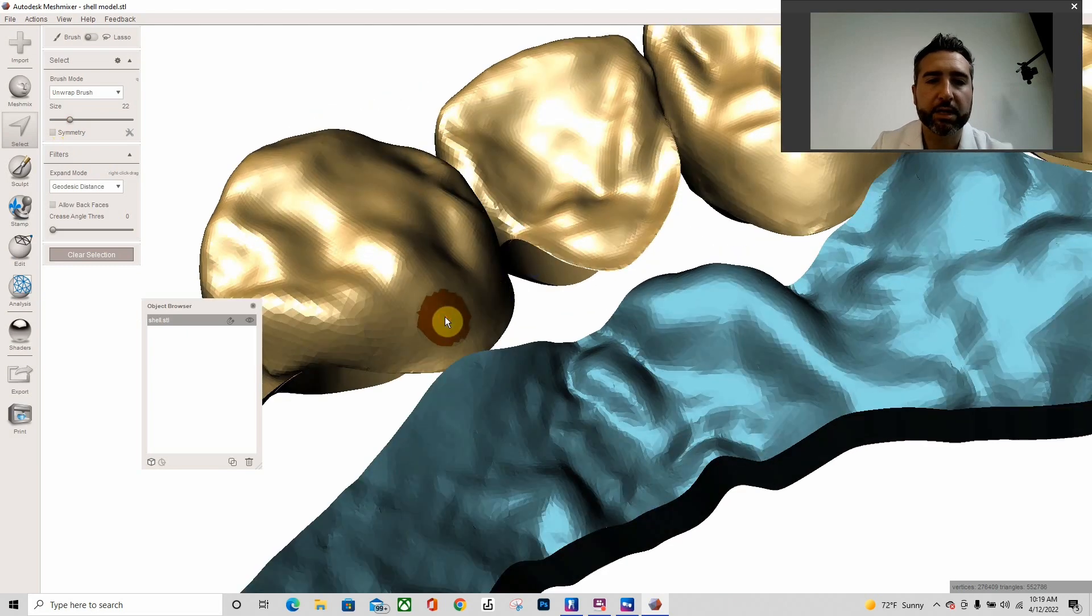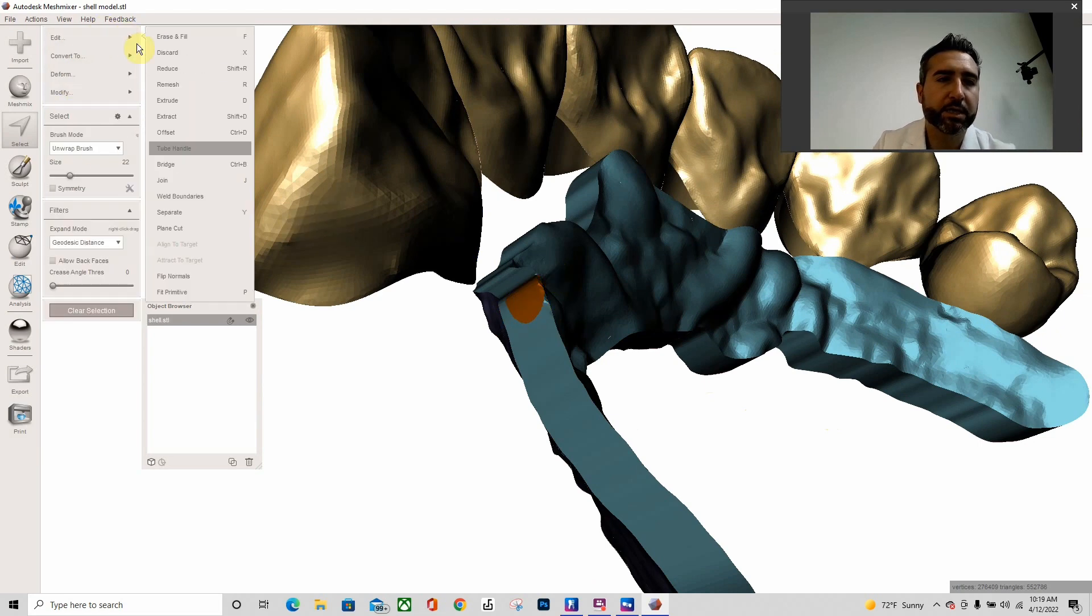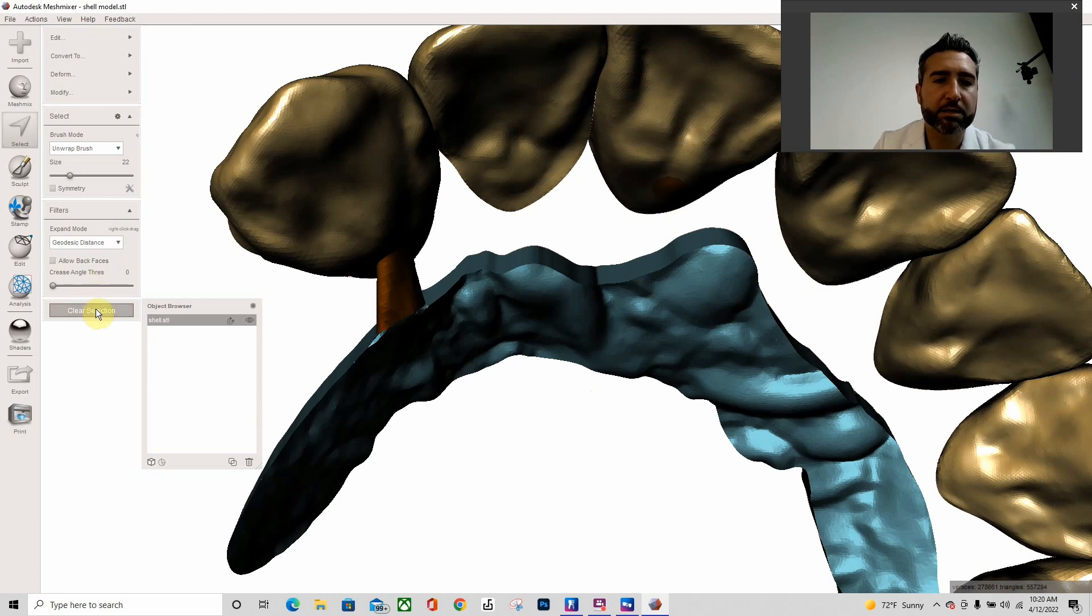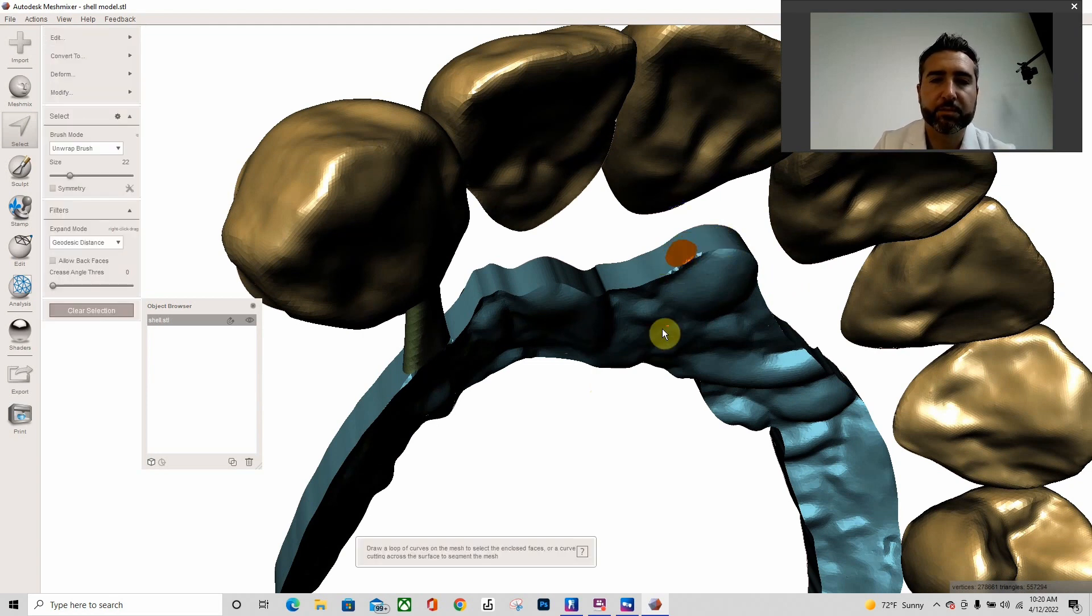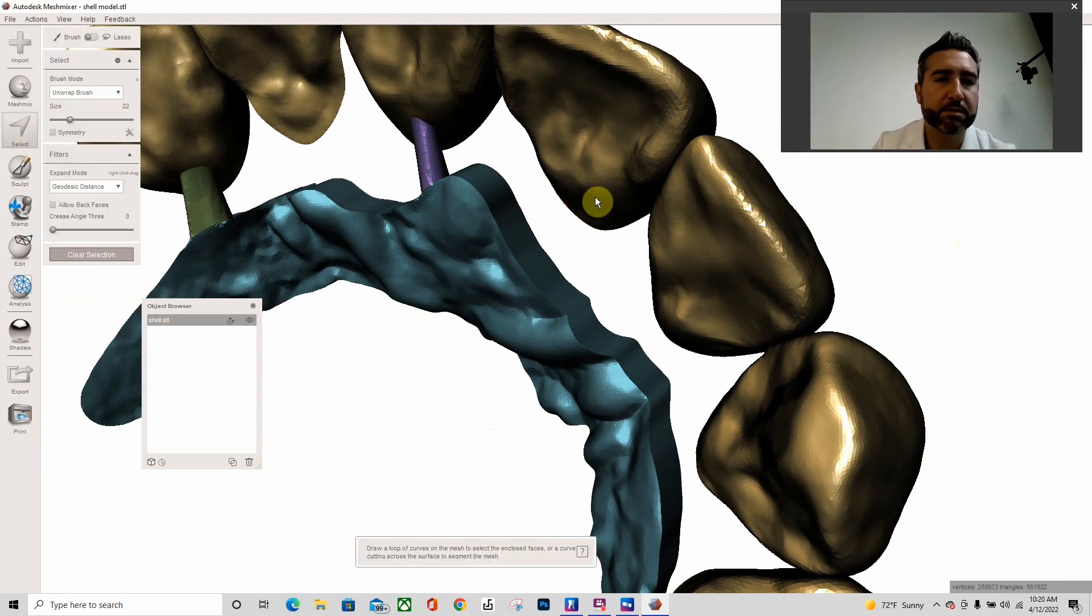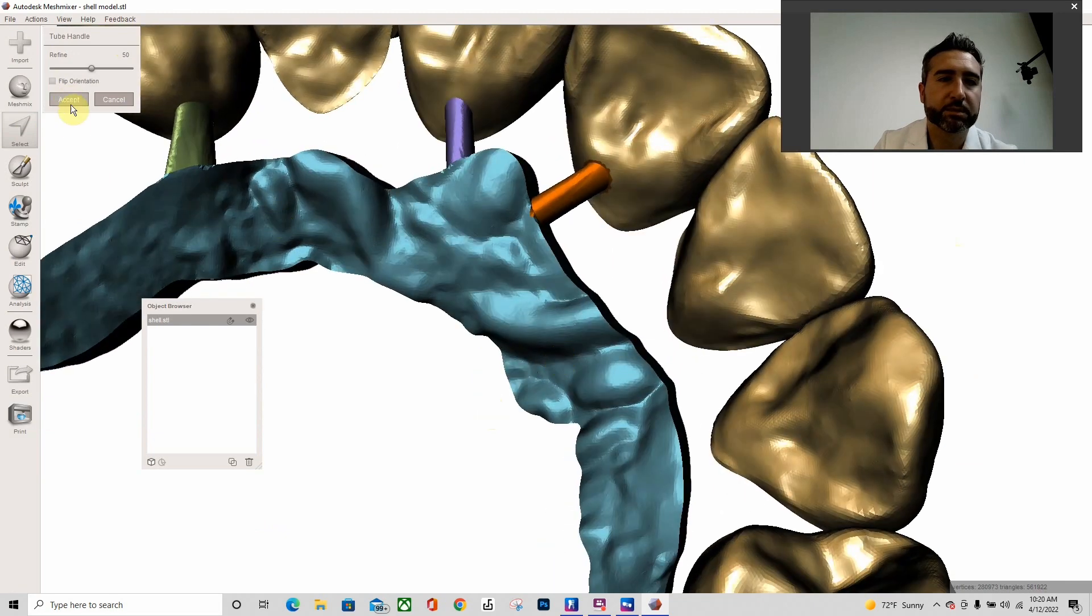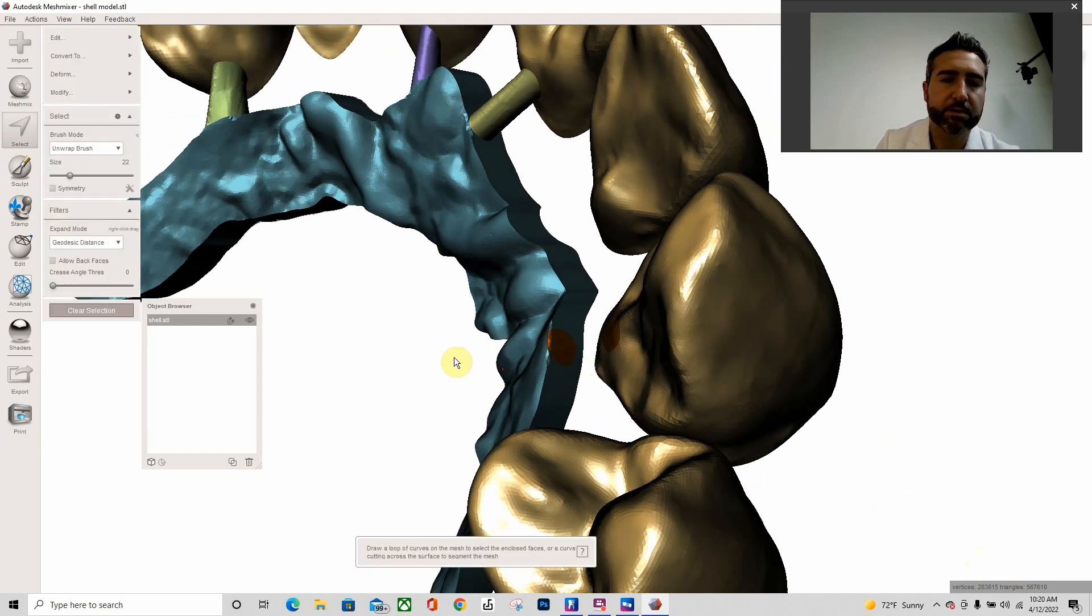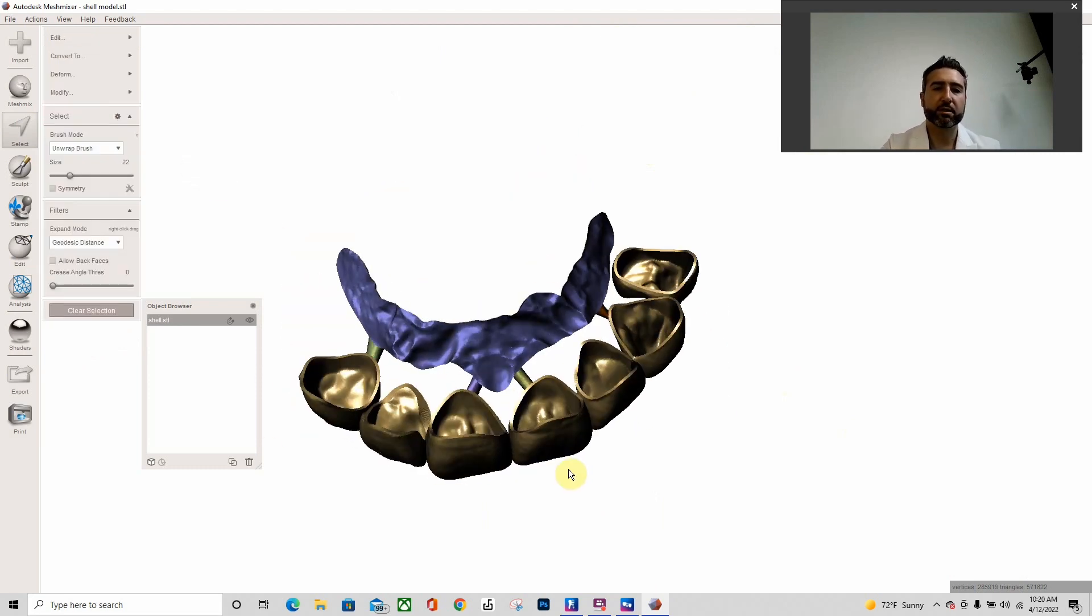This is a Corey Glenn technique. Basically, you want these two circles to be... hit B to smooth border, and then go to edit tube handle. Yep, it's going to create like a little arm. Hit accept. I'll probably do just a few more. So one right here. Let me clear selection. We have one right here, so maybe right here. B to smooth border, and then edit tube handle. I'll probably do... hit accept. Clear selection. Again, circle there, circle there. B to smooth border, and edit tube handle. Accept, clear. I'll do one more probably on this cuspid right here. B, enter. Tube handle. That should be enough. If you're worried about it, you can add one on that premolar. So there we go, now we have a vertical seat. You could do a facial bar, you could do a lingual bar.